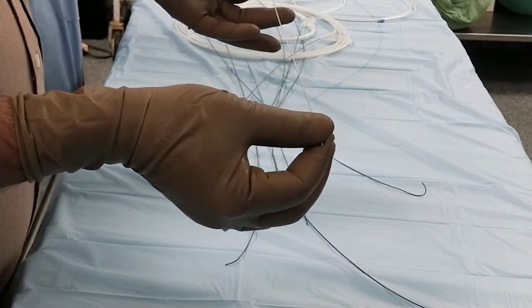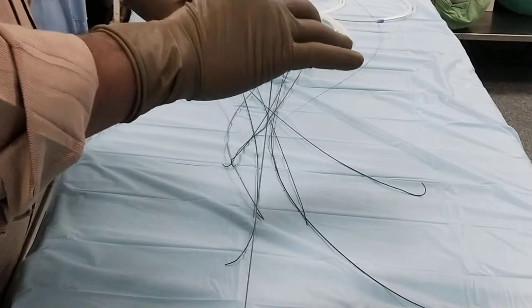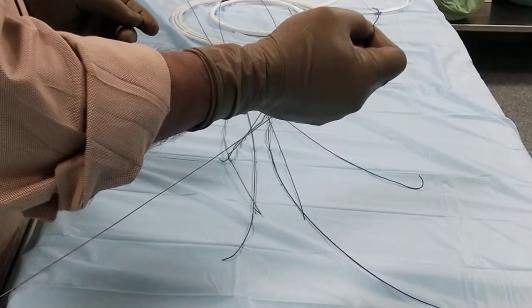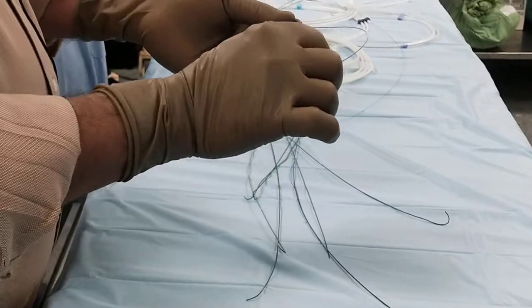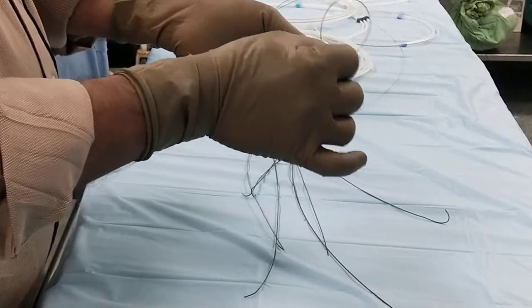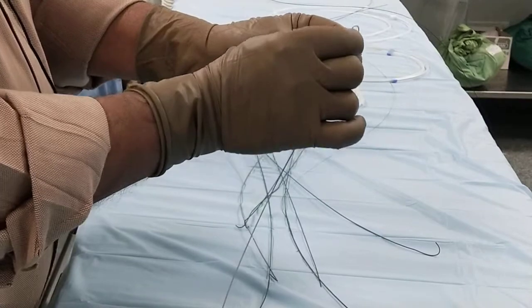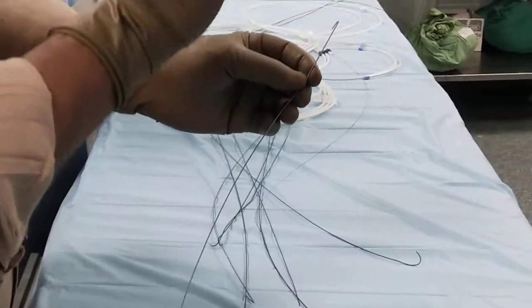This need not be Teflon coated. It is stainless steel, and there is a spring over here. What happens is there is a core inside — a steel core. You can see the bending is a little difficult at one end. But at the tip, the bending is very easy. This tip is going to be in the artery or vessel where you want to go.